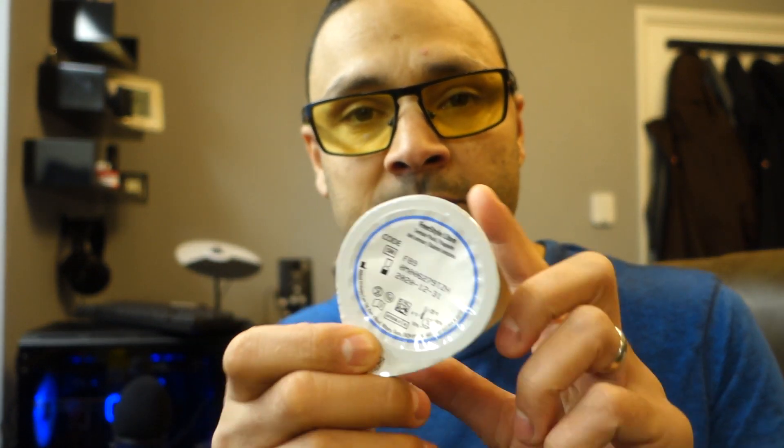What I'm going to do is clean and prepare the spot, then insert the new one, activate it, and just wait for it to calibrate. Then I'll keep an eye on it to make sure the reading is correct. So first I'm going to start by opening this up.